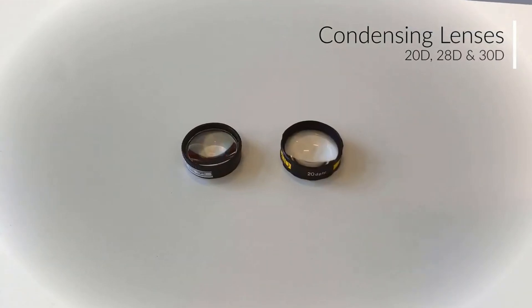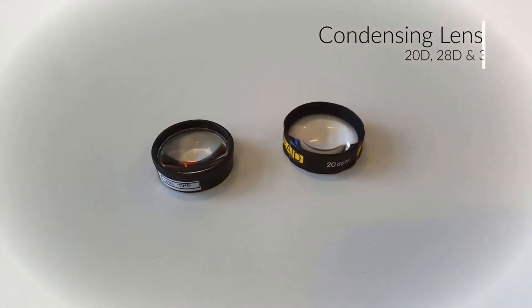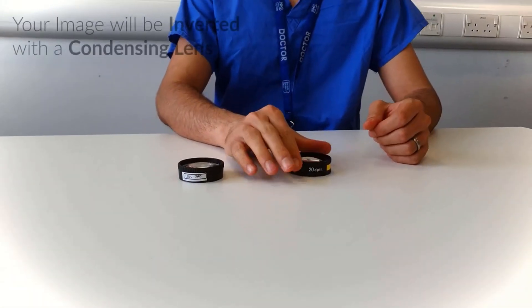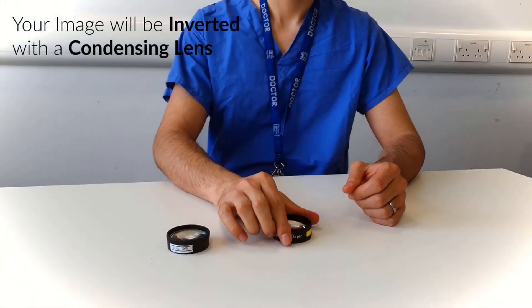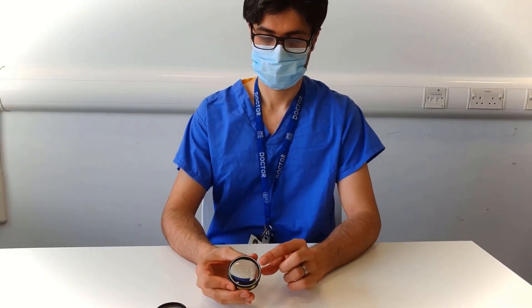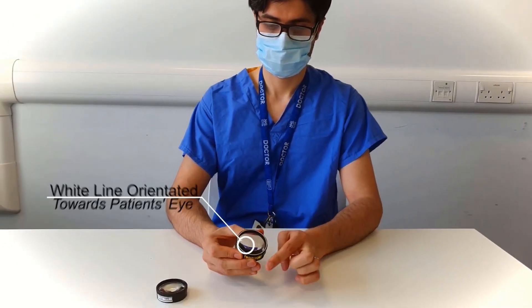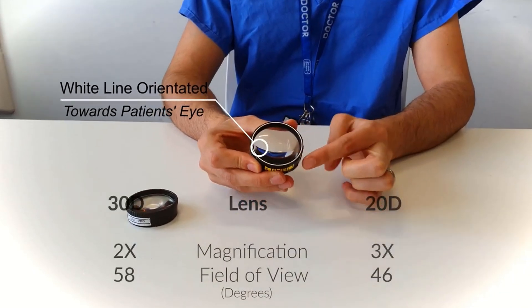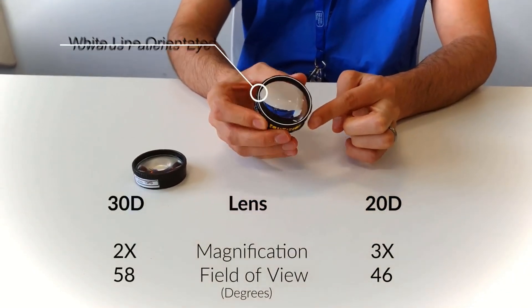In adults, start with the medium brightness and spot size. You need to use a condensing lens to see the fundus with the BIO. There are different powers of lenses, with the most commonly used being 20 diopters, 28, or 30. Different lenses create different fields of view and consequently different degrees of magnification, as illustrated here.